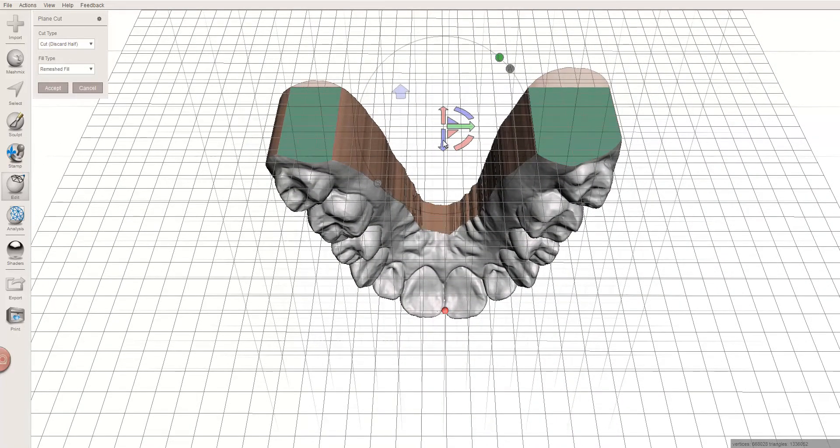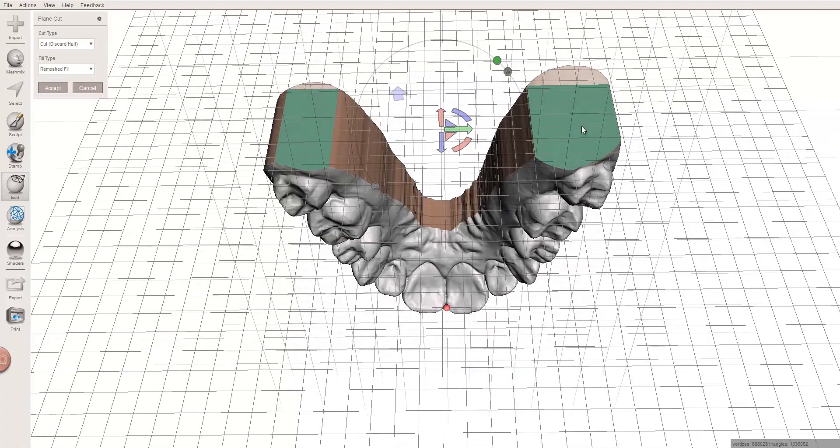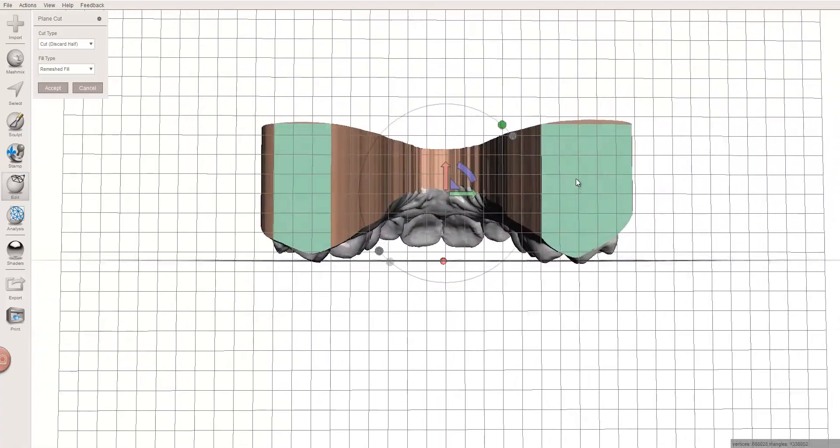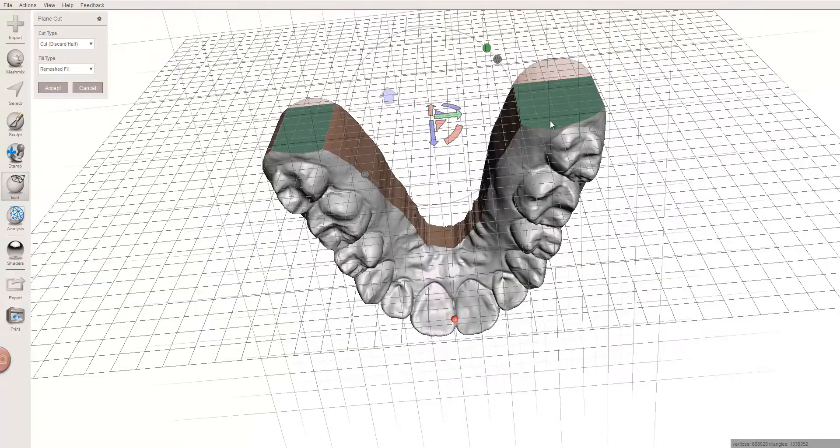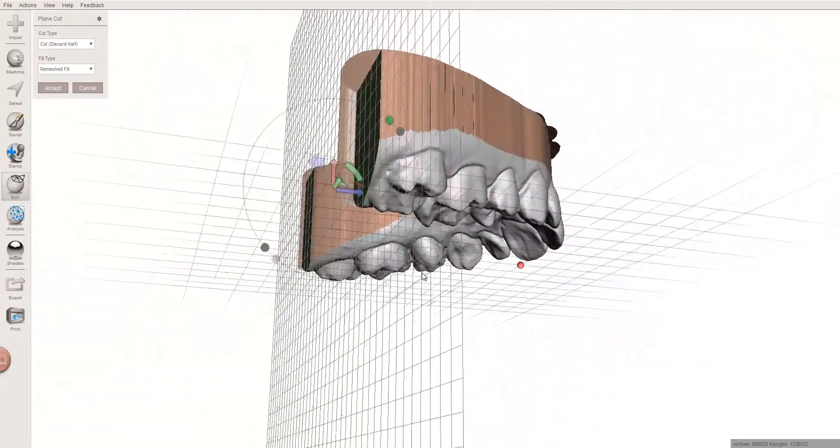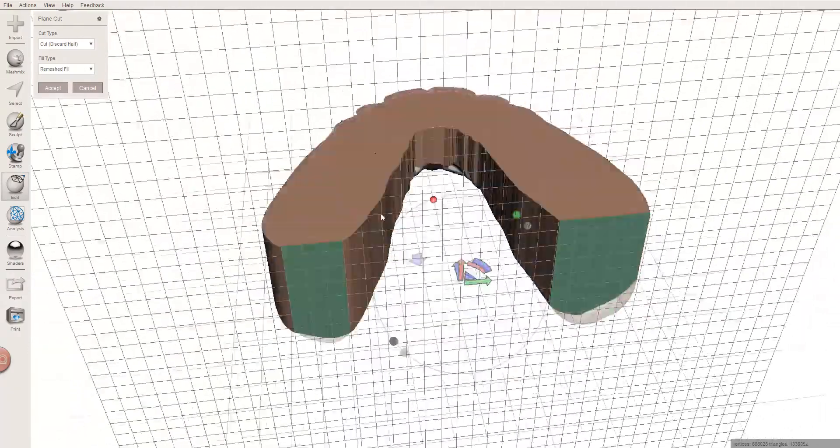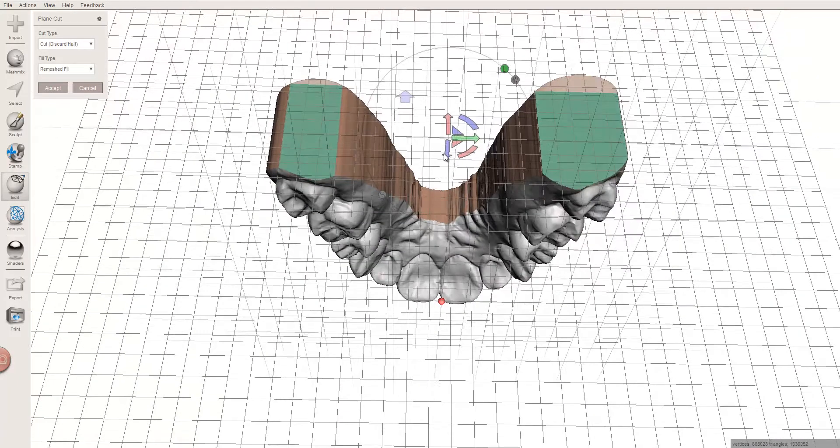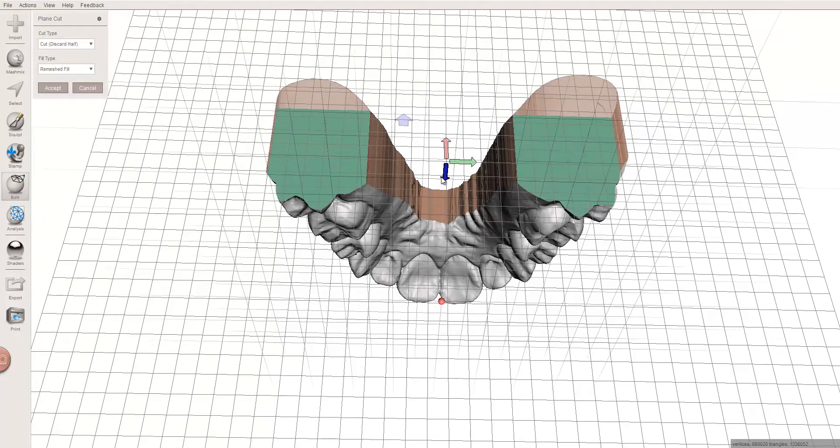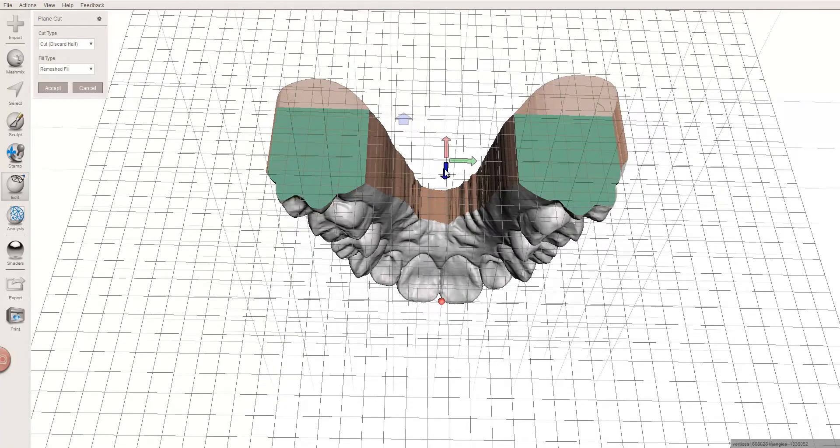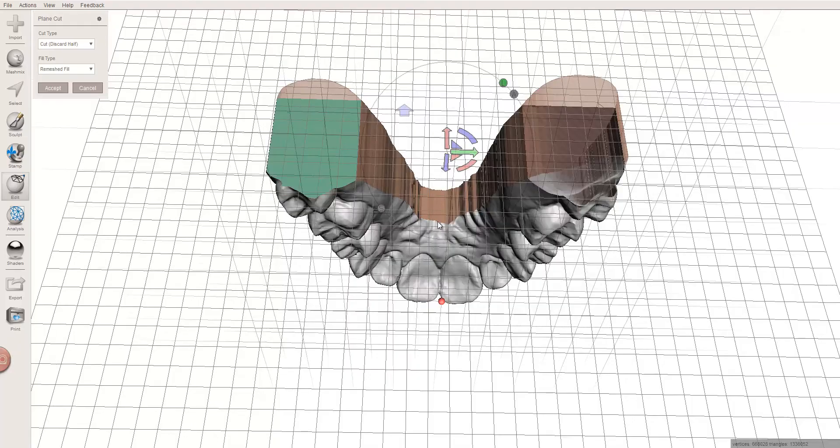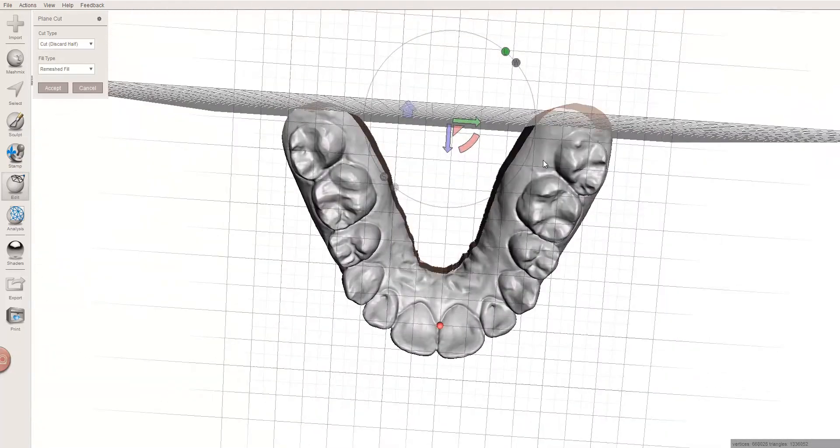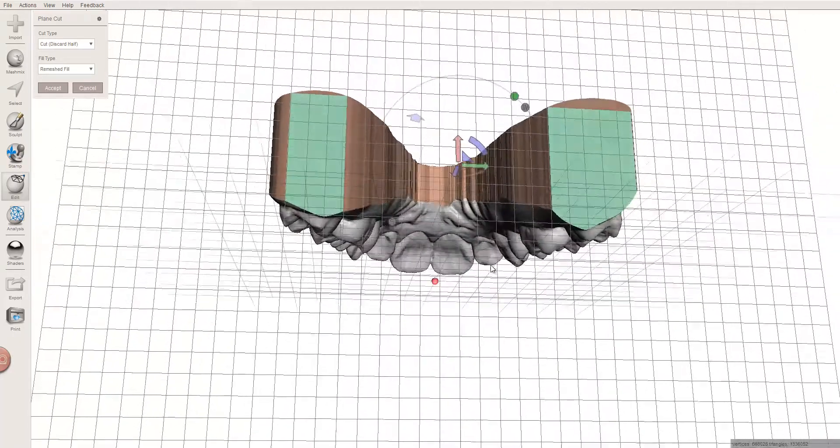If it ends up open, and I'll show you what that looks like in a minute, you run into problems. When you get to the back here, when you have just a vertical 90 degree plane cut, I don't usually almost ever have an issue with finding it closed. Maybe if I'm coming up through the middle of the teeth up here, then yes, you might have those little openings you see popping up on that right side. But as long as we're staying to the distal of the second molars, usually that's not an issue.